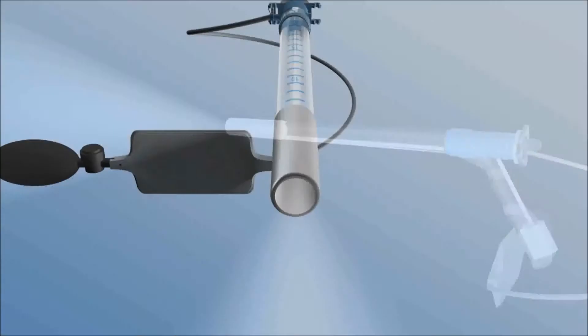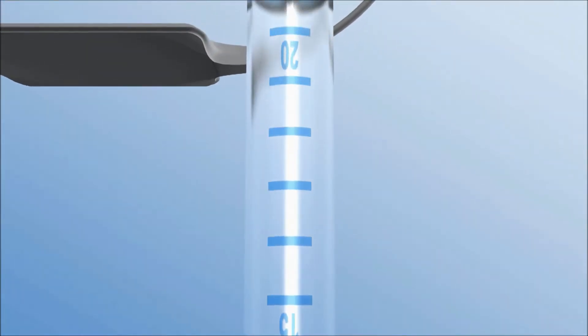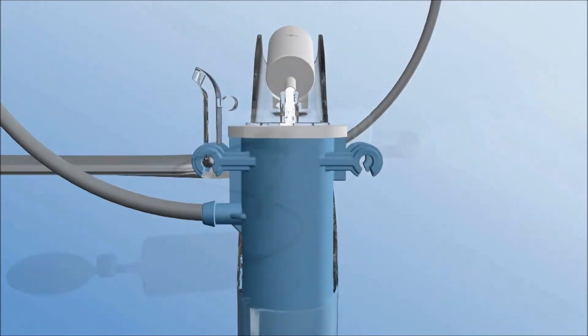After use, SigmaLux, including the battery and insufflator, is simply dropped into the clinical waste bin, saving time, money, and effort.